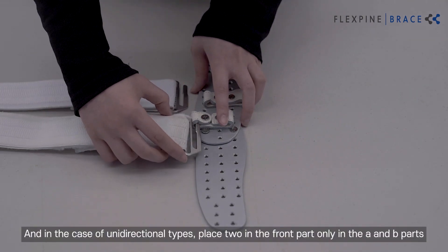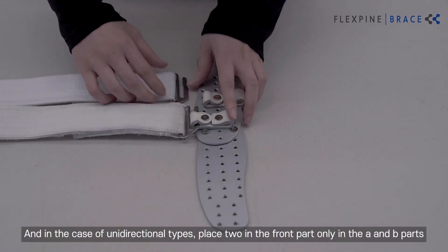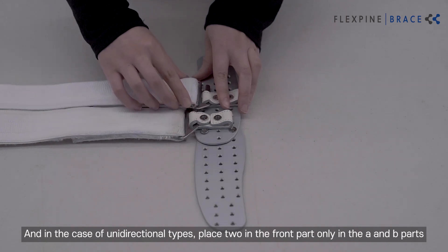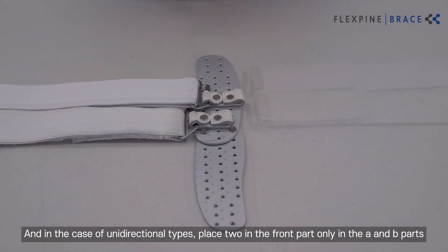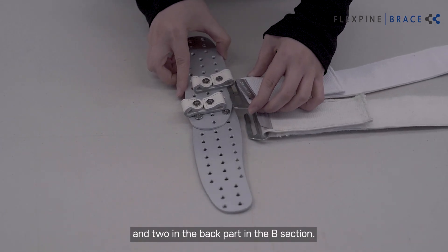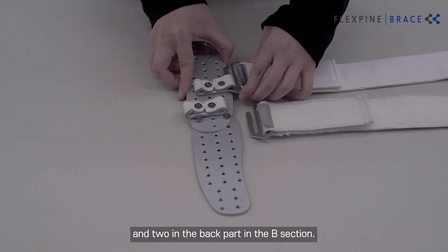In the case of the unidirectional type, place two elastic bands in the front part only in sections A and B, and two in the back part in section B.